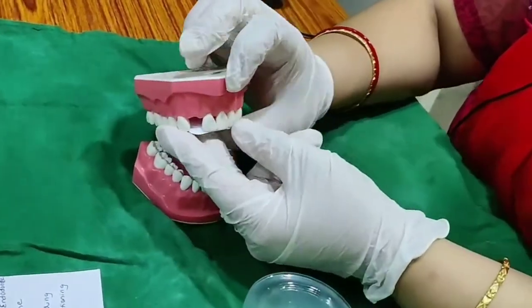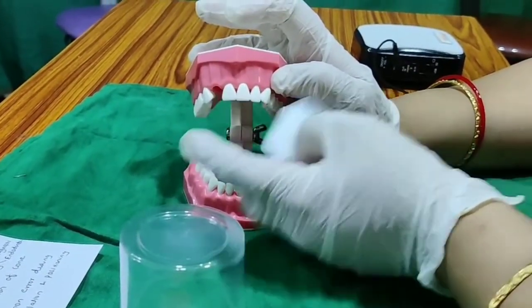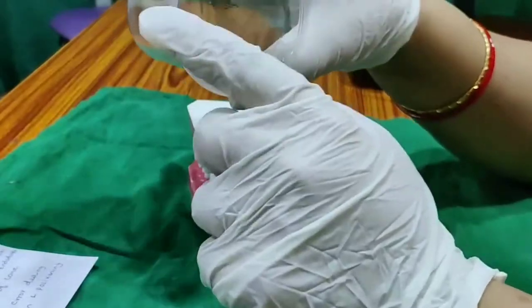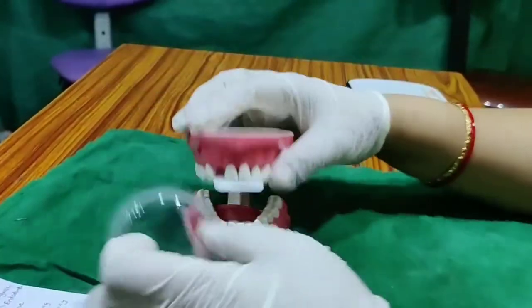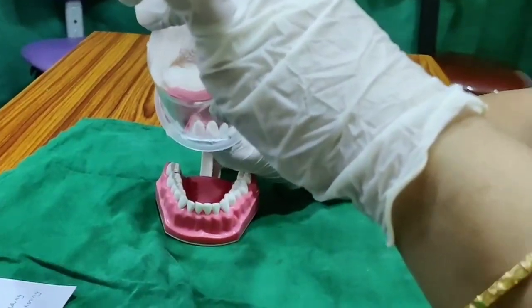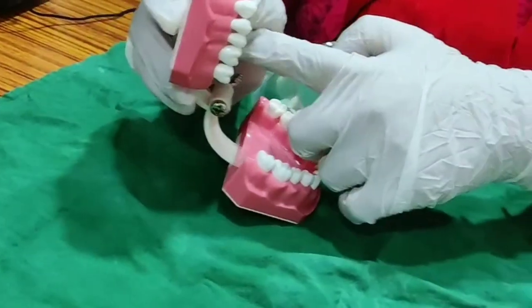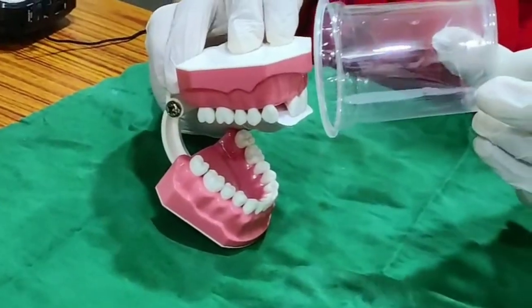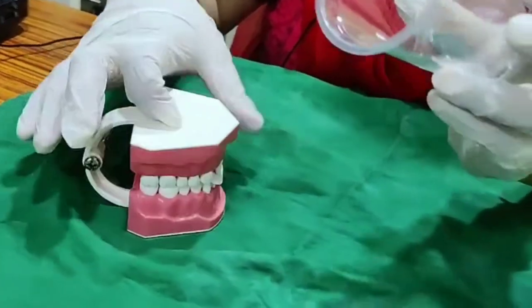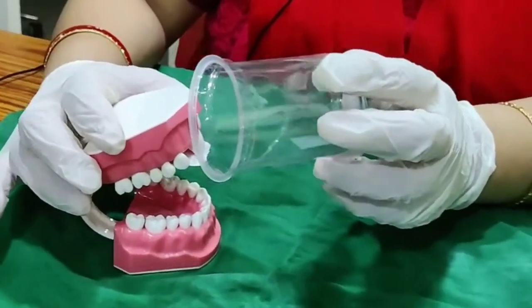Another common error is cone cuts — not focusing the cone correctly. If you are taking a central incisor X-ray but the center of your cone is off to one side, that area will be unexposed and you get a cone cut on the image. The center of the cone should always focus on the required area — the center of the cone must correspond to the center of the area of interest. If not, you will get cone cuts.